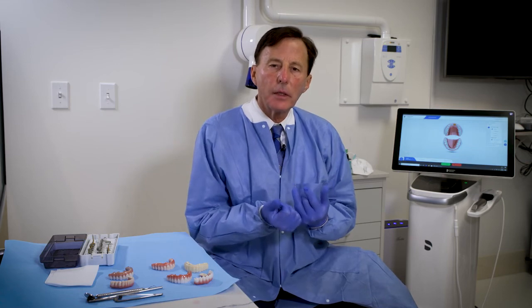There are two reasons why we do the mock-up. On the second day, after all the time spent designing the teeth, you get a chance to see exactly what they look like. We've already done computer simulations before surgery to go over how you wanted the teeth to look, but now you have one last chance to request changes. For example, if we designed square central incisors and you wanted them softened a little, my designer is right across the street, and before we start milling the real restoration, we can tweak the design.